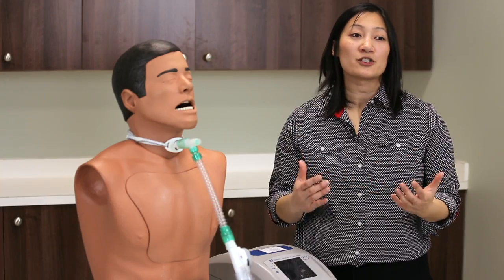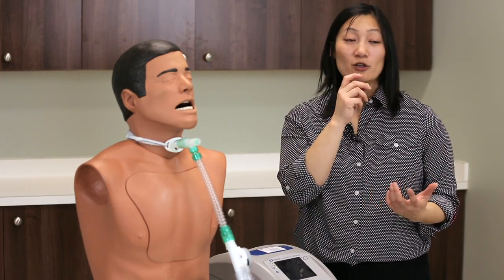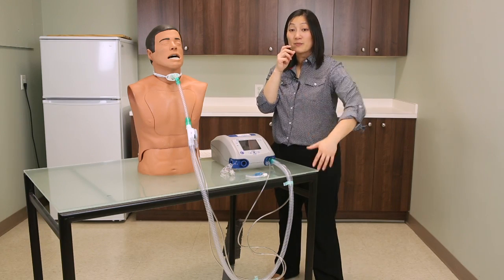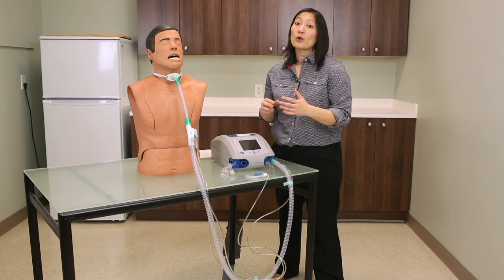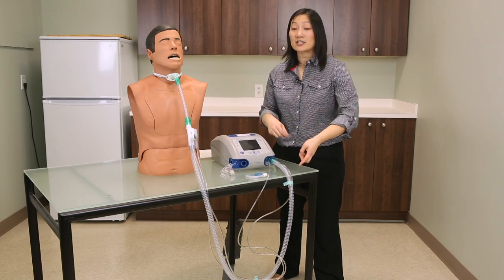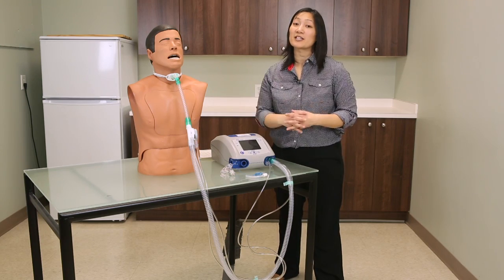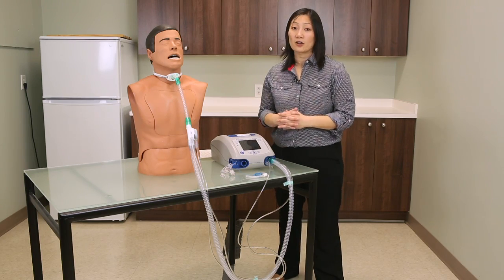The best analogy is picturing yourself blowing through a small straw — that resistance or pressure that you feel is actually what is measured in the circuit. So if your low pressure alarm is set lower than the pressure being delivered through the circuit while it's not even connected to the client, the ventilator will not alarm.